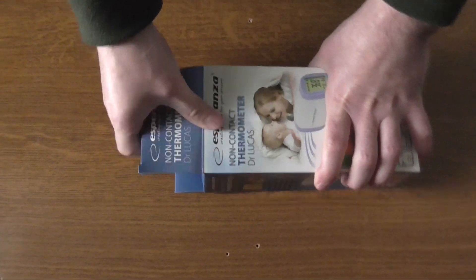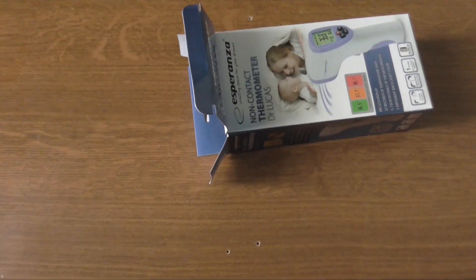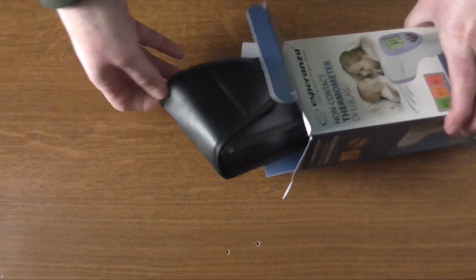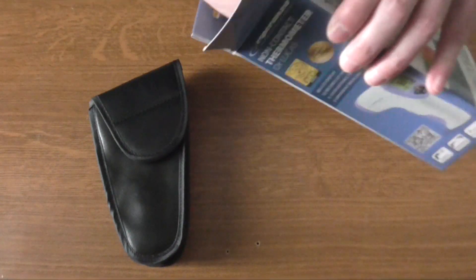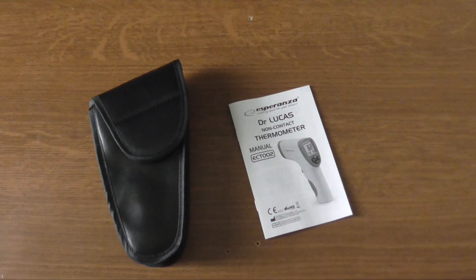So let's open the box and check it out closely. I should also mention that this was a really low-cost device, so there is no real reason for not buying one. Inside the box you'll find a carrying case that comes included so you can attach it to your belt, and also a user's manual.